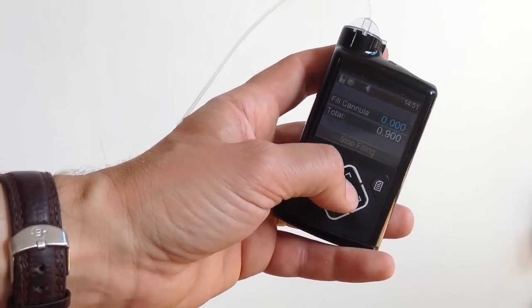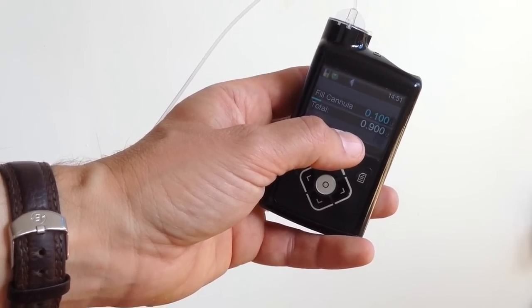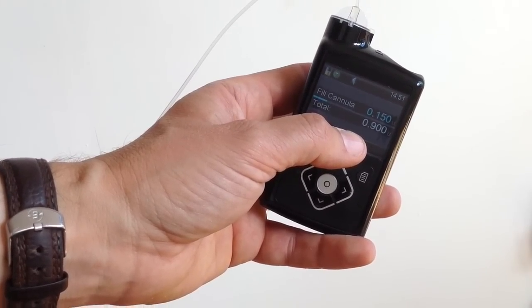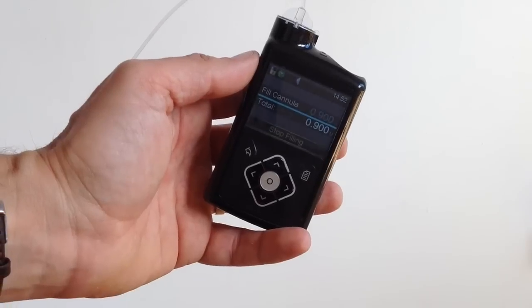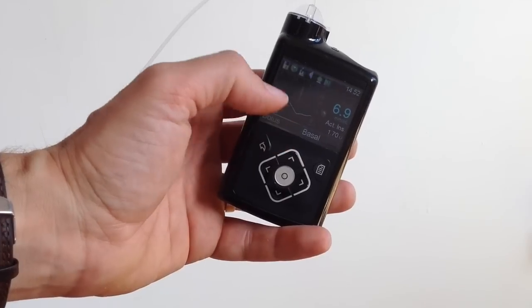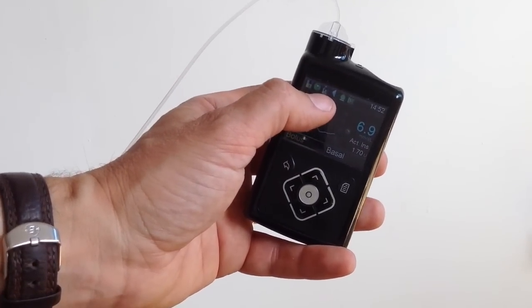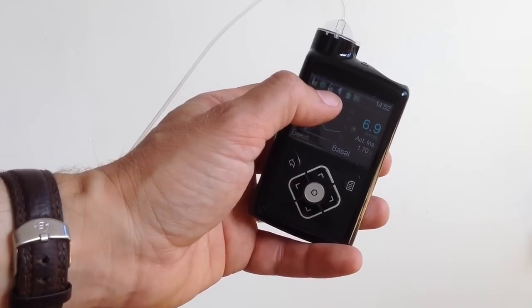OK that. And then press fill now. And it gives you a little screen. Just to show you that happening. There you go. It's just blinking at the end.